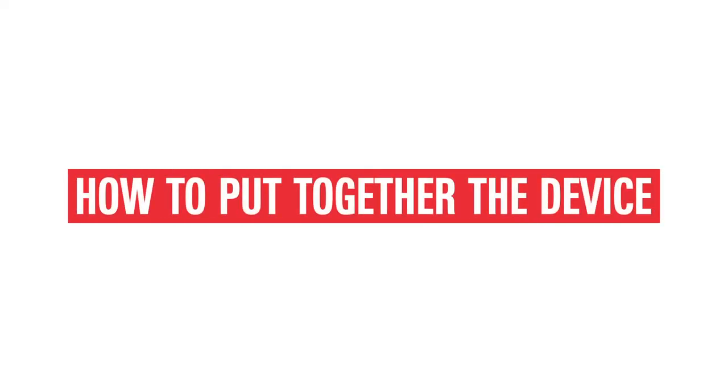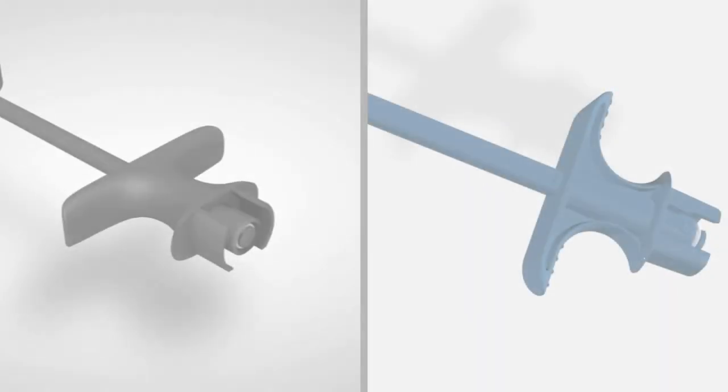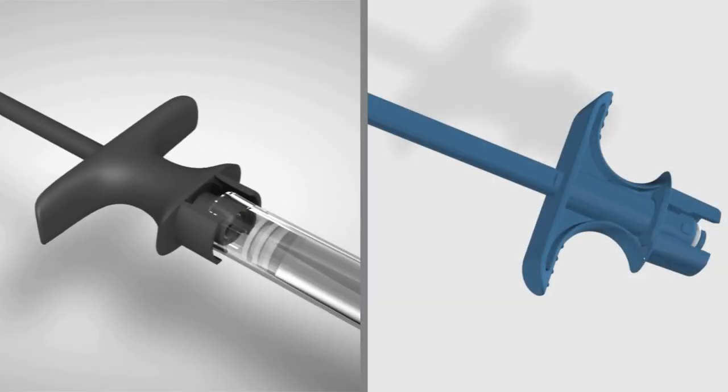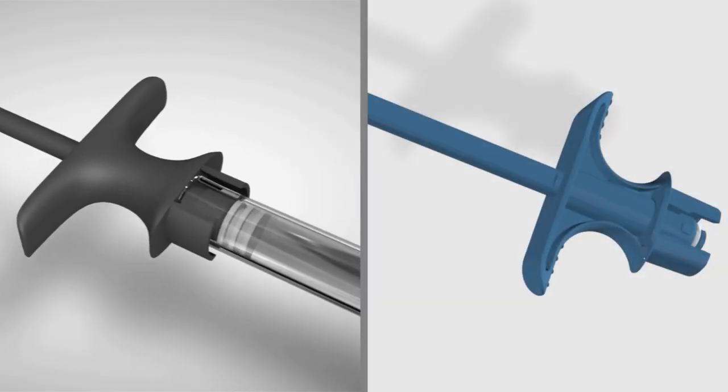How to put together the device. With ULTRA SAFETY PLUS, you had to insert the handle into the open end of the syringe directly behind the cartridge and push firmly so the barrel would rest against the handle.